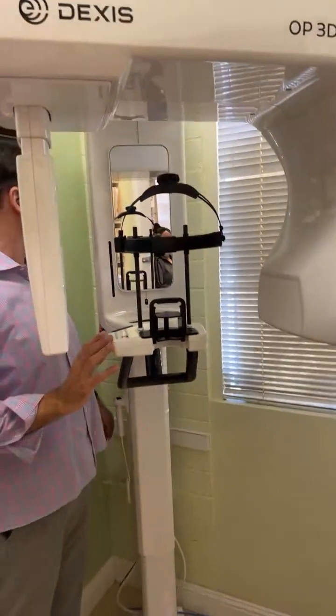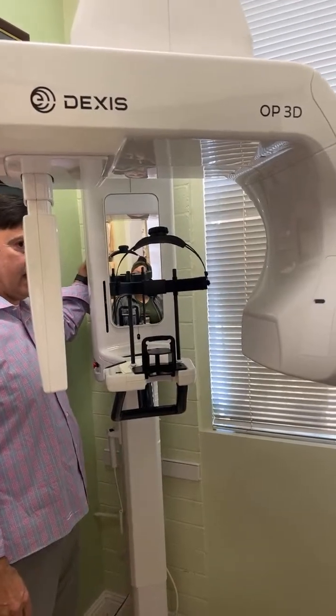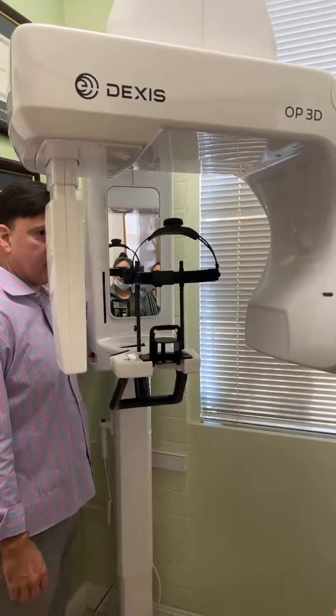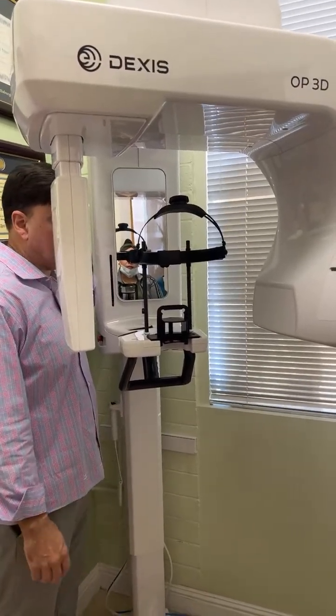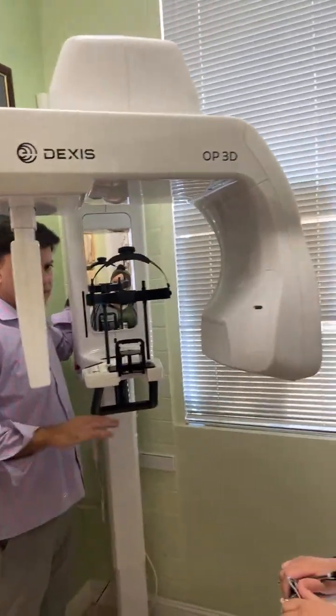Okay. So the on-off button is up here in the back. Way up here where my hand is. So you'll turn this on first, and then I boot up the computer second. So it finds it a little faster. Doesn't matter if you do it the other way. I just think it's a little faster to do this first and then that. Okay. Doesn't hurt either way.